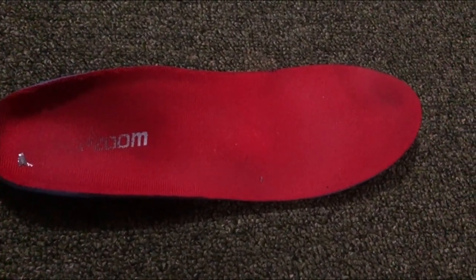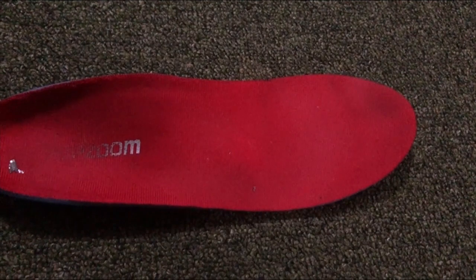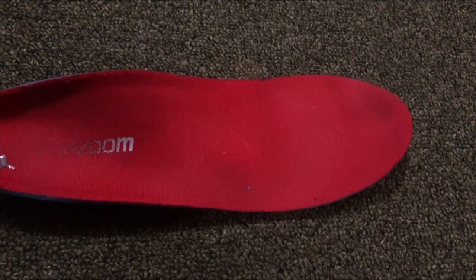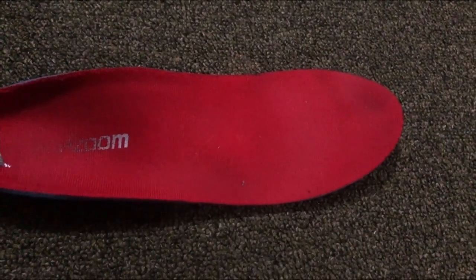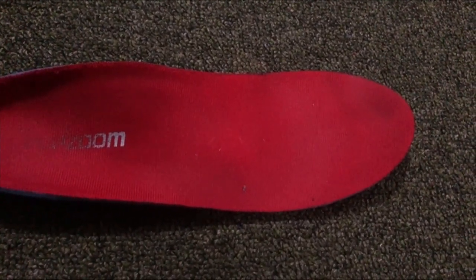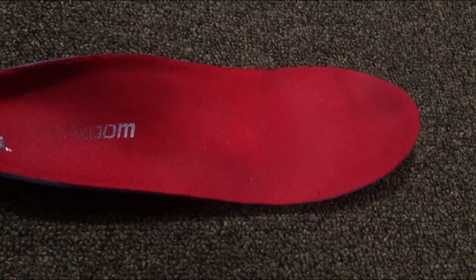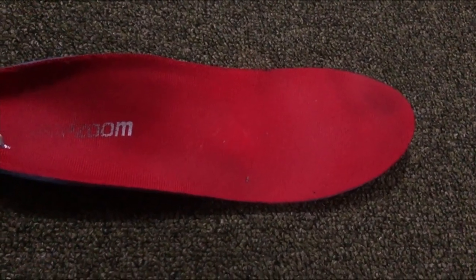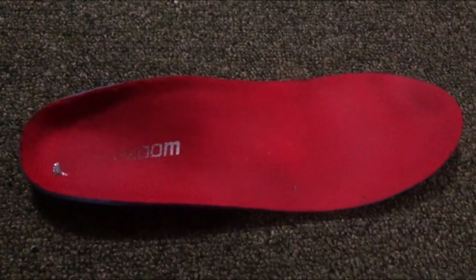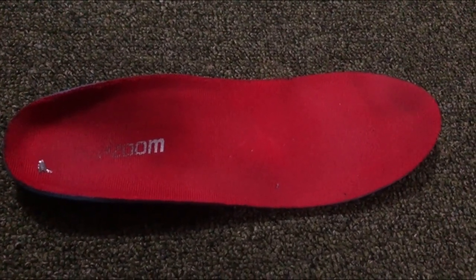To give you a few specifications: it's got a 1.1 inch arch support, which really helps and makes you feel comfortable. It's got a deep heel cup with enhanced support. It's really good for relieving plantar fasciitis pain, knee pain, and low back pain caused by standing and walking for long periods. It's durable with EVA foam on the bottom providing cushioning, though not quite the same as gel.